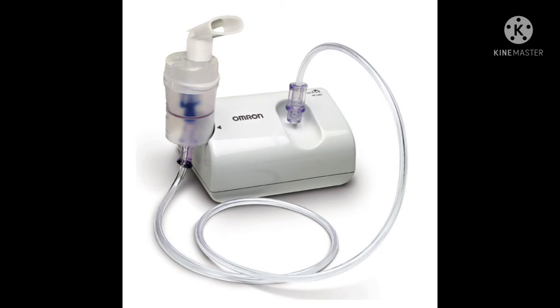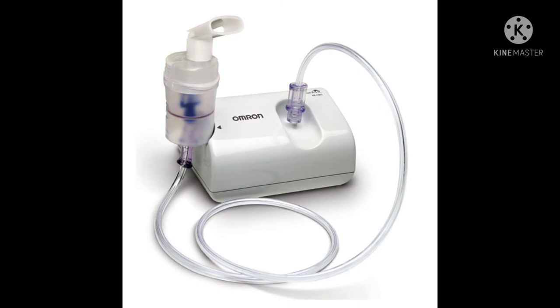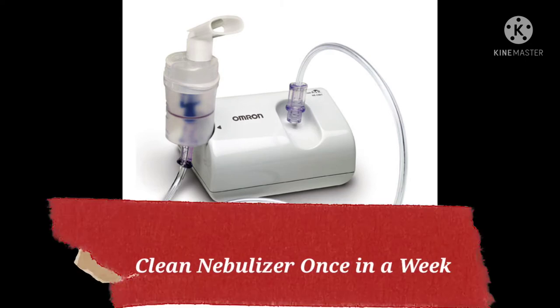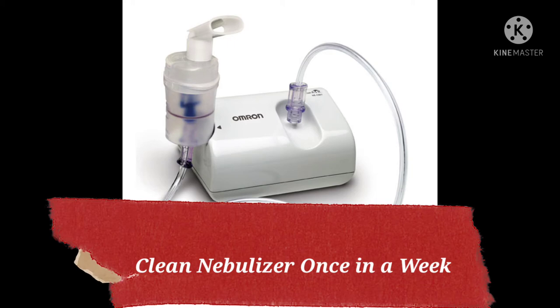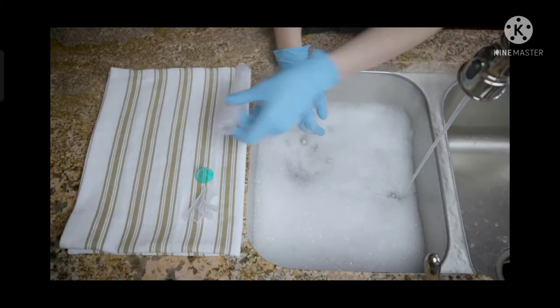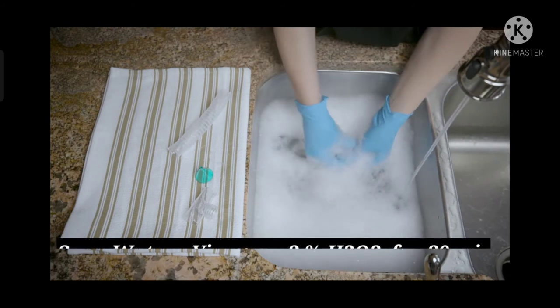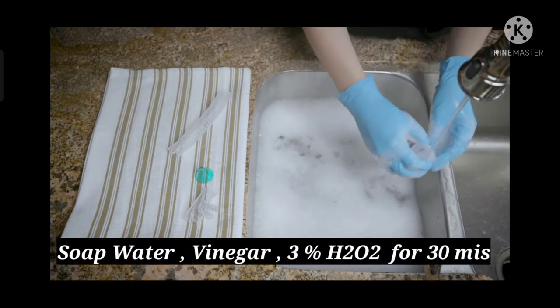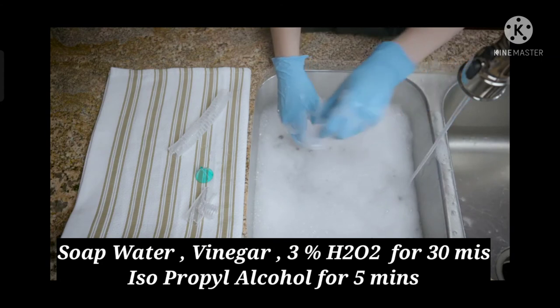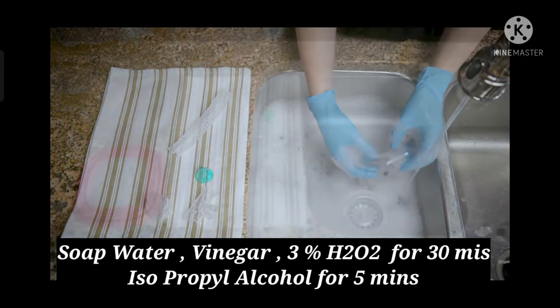After 10 to 15 minutes, the nebulizer power supply should be turned off. One important thing to note is that we should clean the nebulizer once a week to avoid fungal infection. We should wash the nebulizer parts — except the tubing — in soap water, vinegar, or 3% hydrogen peroxide for 30 minutes.